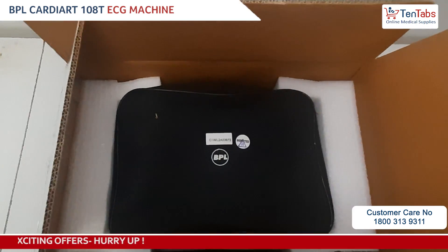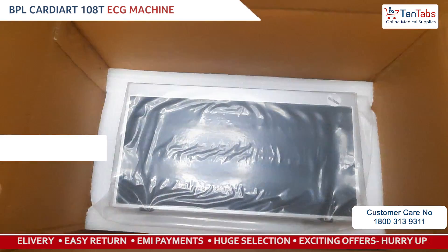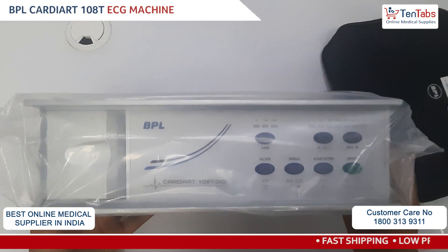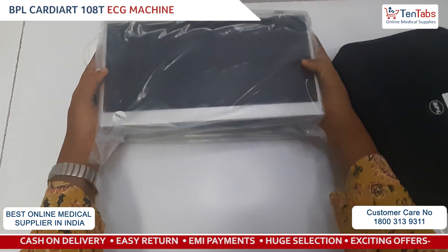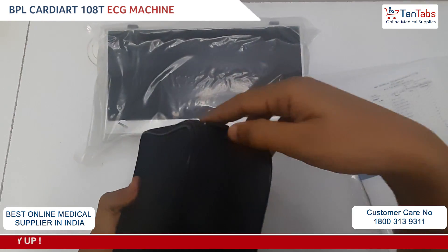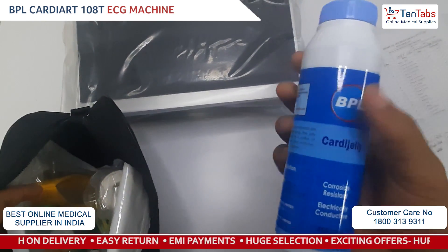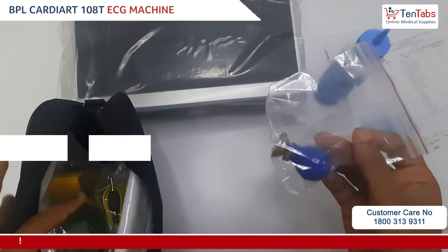This is the accessories carrying case, and this is the main device — the ECG machine. Coming to the accessories, here we see there is a carrying case for all the accessories, which has the Cardi jelly 250 ml bottle, one ECG paper roll, and bulb electrode.